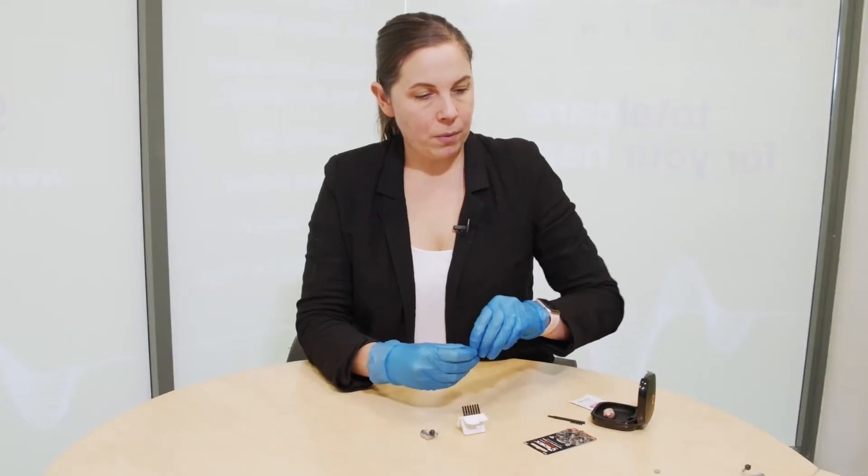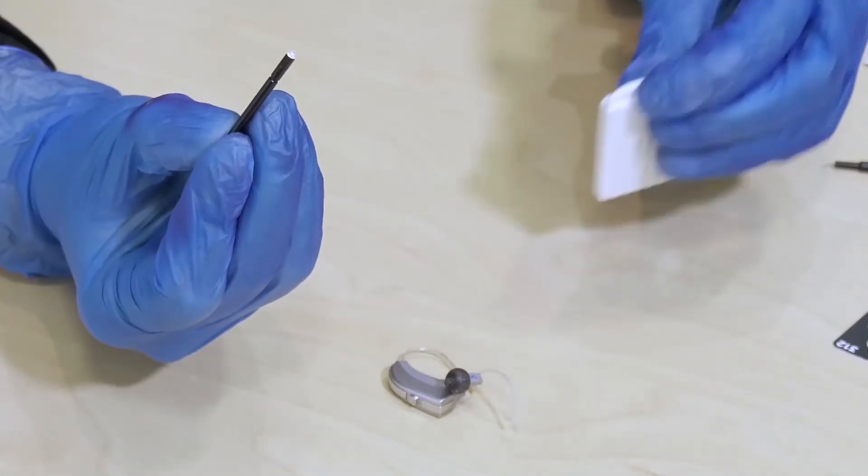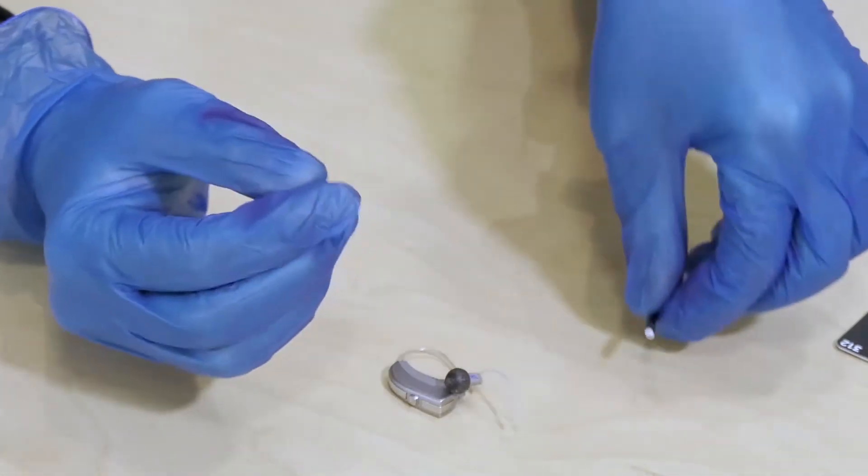Now to change the wax filter in the one that sits behind the ear there's one more process that you need to do. So you want to get this stick ready that has the new filter on one end, pop that ready.